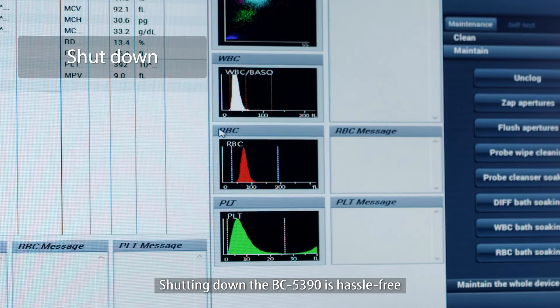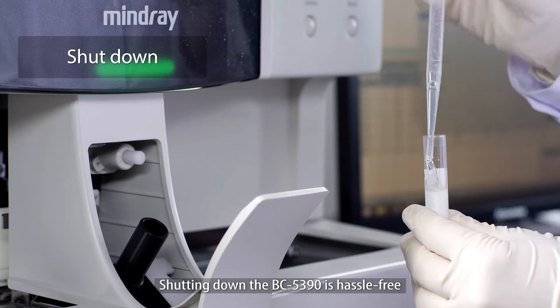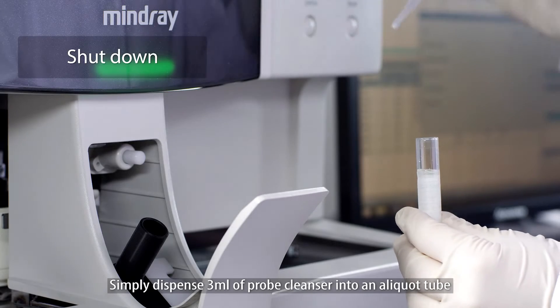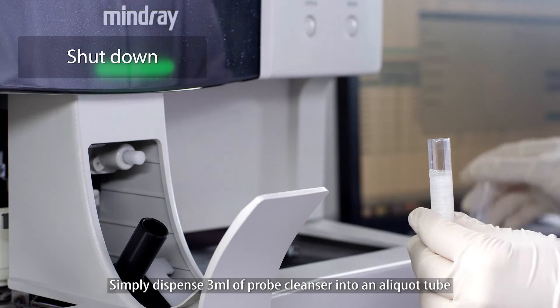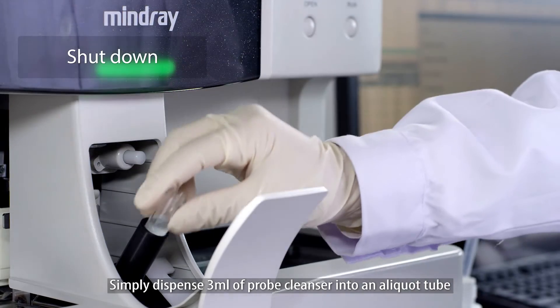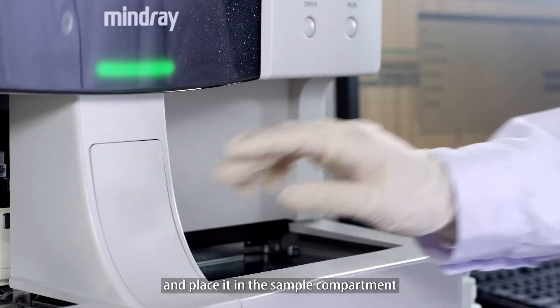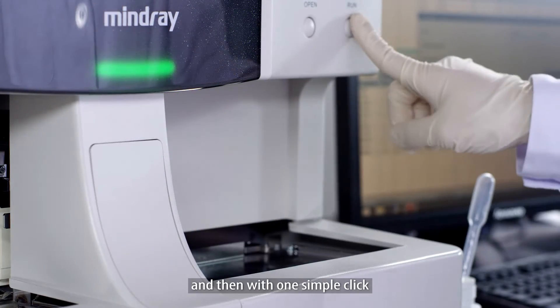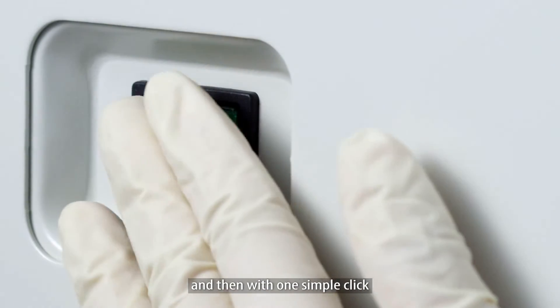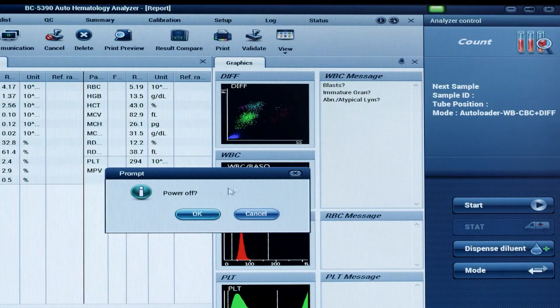Shutting down the BC5390 is hassle-free. Simply dispense three milliliters of probe cleanser into an aliquot tube and place it in the sample compartment. Then, with one simple click, the analyzer is turned off.